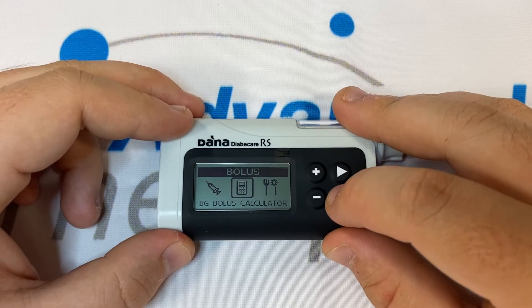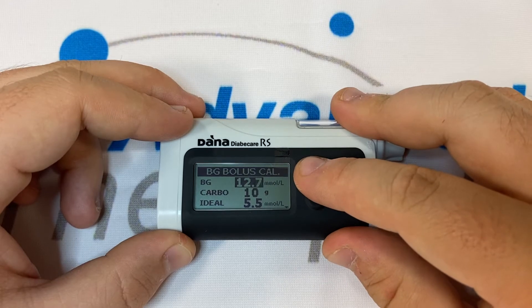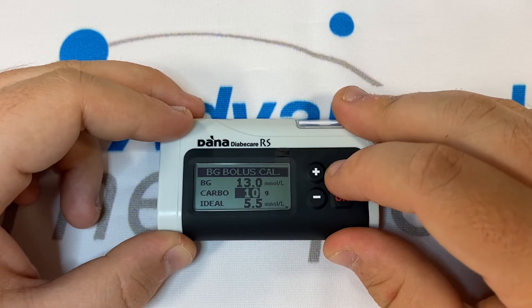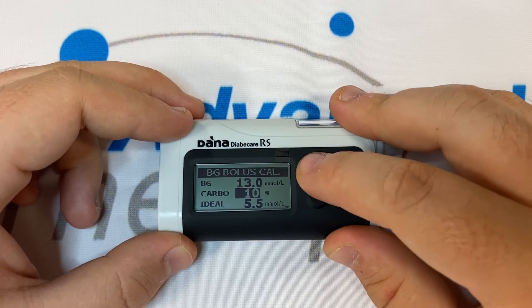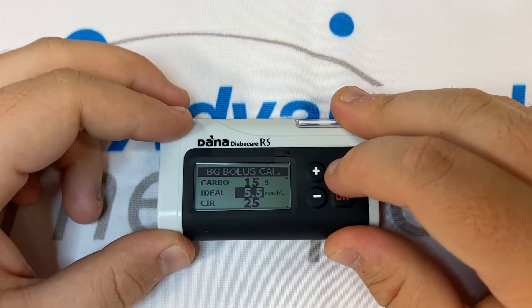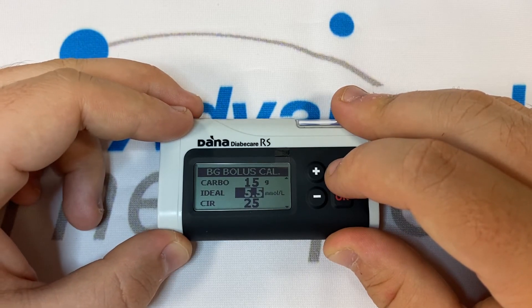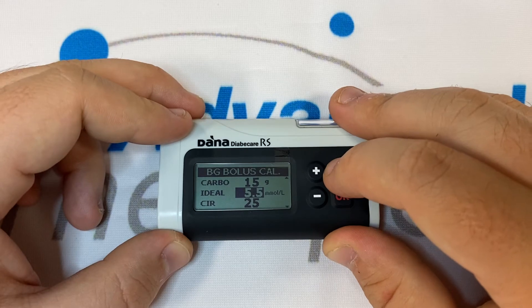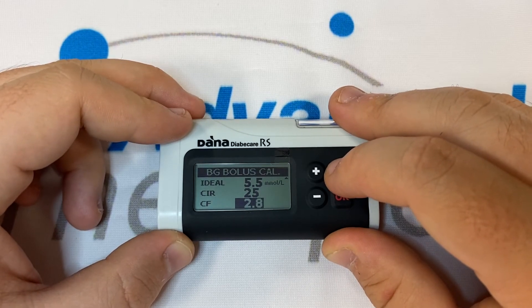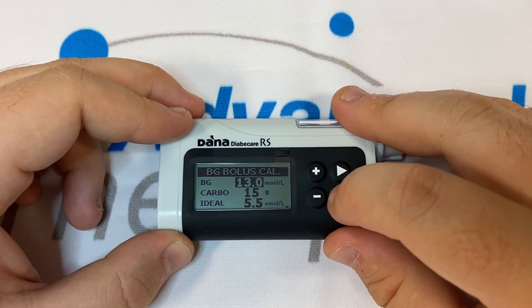We press OK on the bolus calculator and program in the reading. We can press right and program in any carbs that we may be having. We can press right again and if we wish we could change the target blood glucose that the calculator will be correcting us to. We may also wish to check or change our carb to insulin ratio and correction factor.